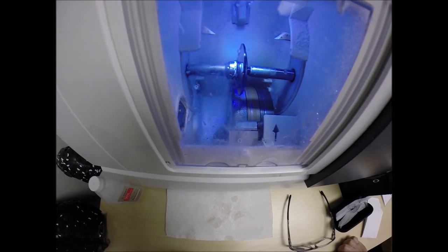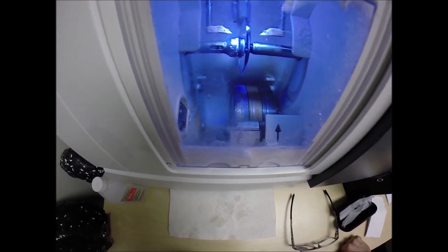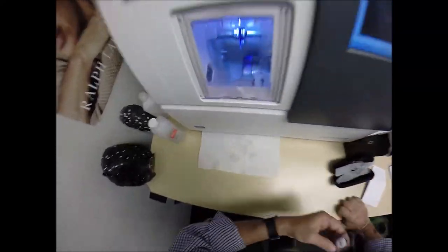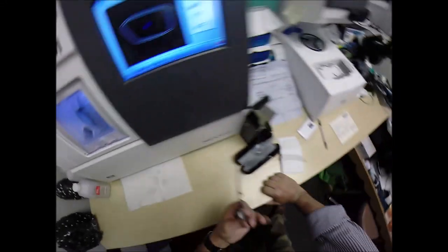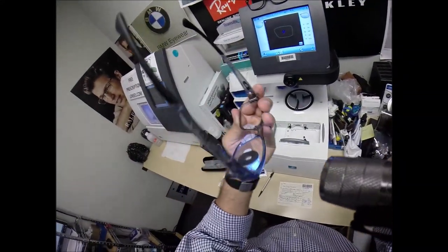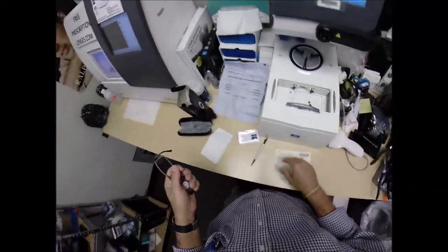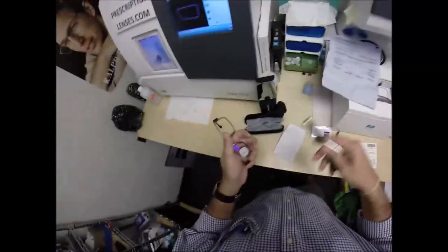The door closes, the clamp shuts. I know I'm a play by play commentator, aren't I? It's going to trace the left lens, making sure it's large enough to fit into the left side of the frame. And then again, measuring the thickness to know where to place the bevel. So you have the least amount of edge thickness showing. Look at that peg. He's got nothing. Dan's got nothing there. No edge thickness whatsoever, even with the above average prescription and above average astigmatism correction.